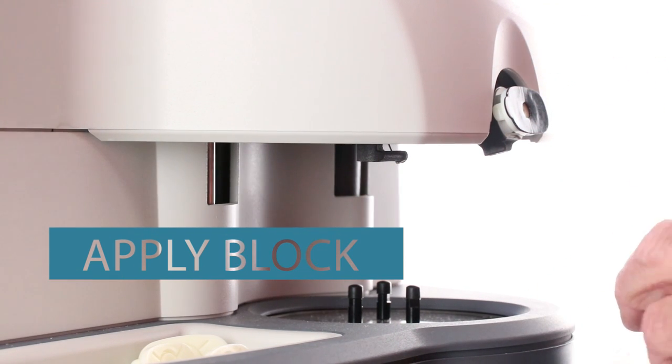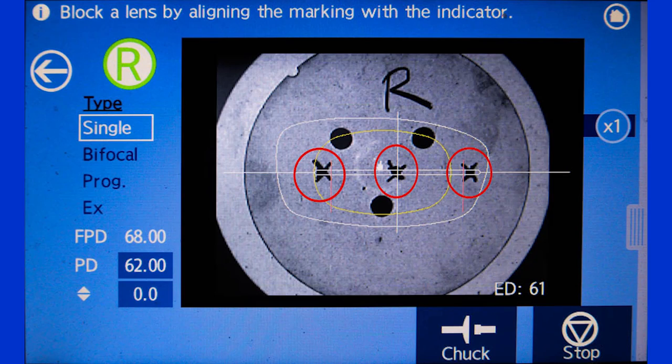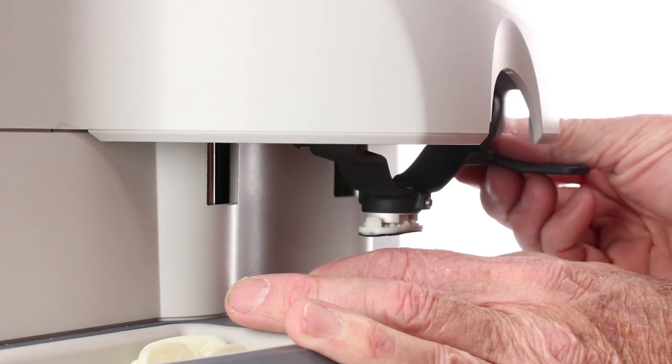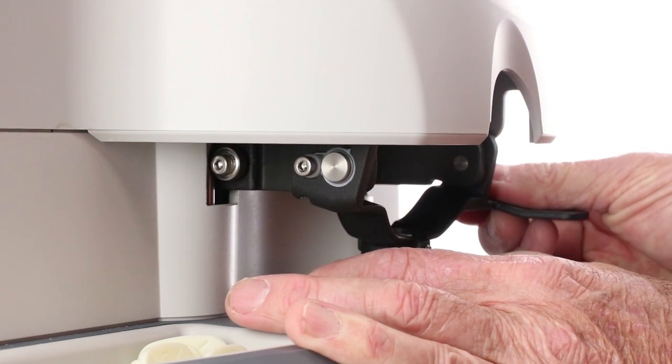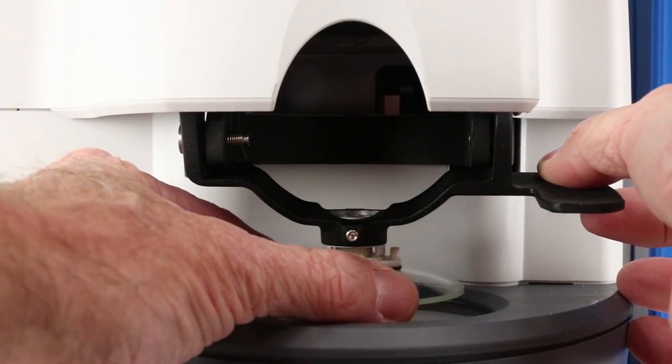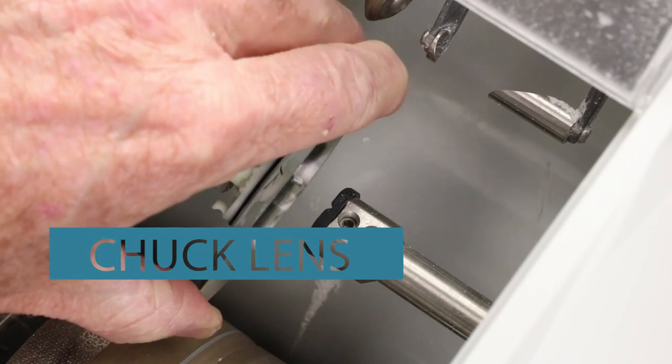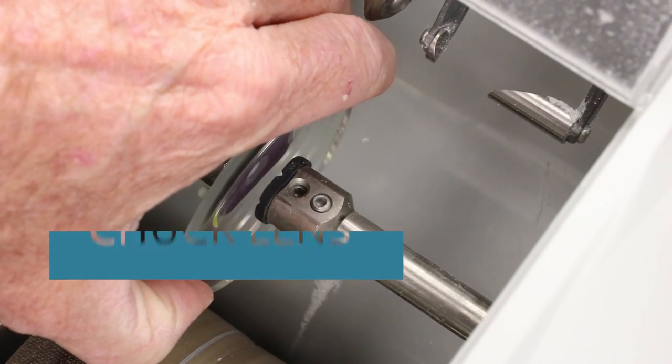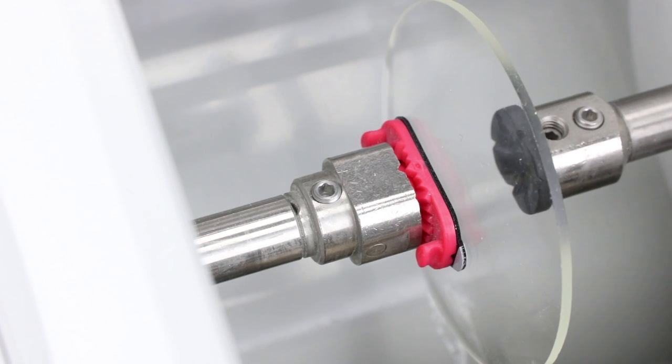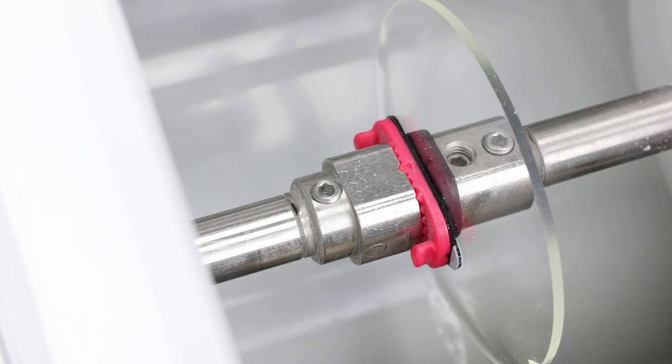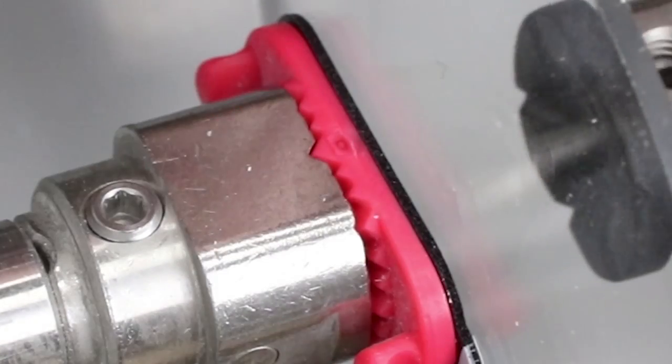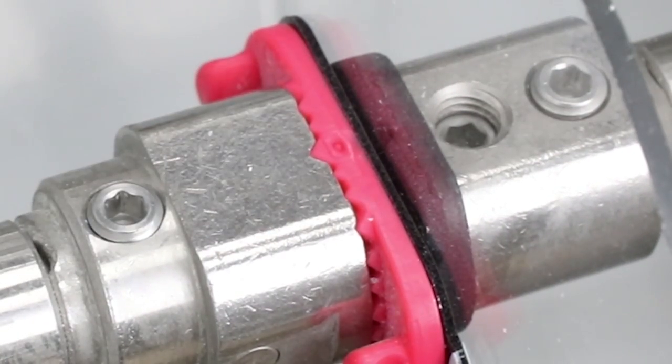What I'm doing is watching this on-screen guide. If you look inside the red circles, you'll see that I highlighted the lensometer dots for you. Once I have those aligned, then I can take the block and stick it to the front of the lens. This lens is now ready to be chucked. Don't get your finger in there. That's about 50 pounds of pressure coming across. And I'm going to show this to you twice. If you look real close, you can see the importance of the teeth on the block and the teeth on the chuck so that everything stays in alignment through the process.